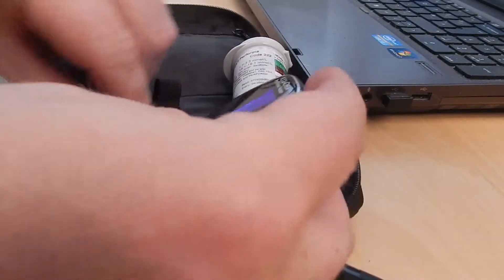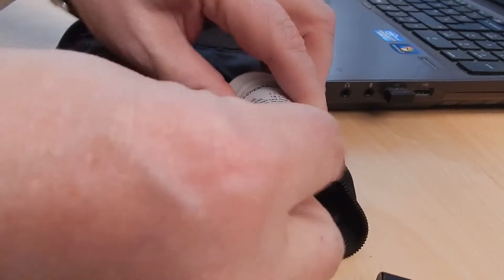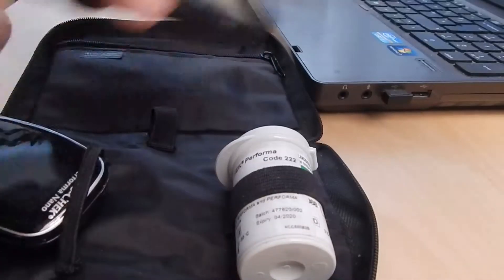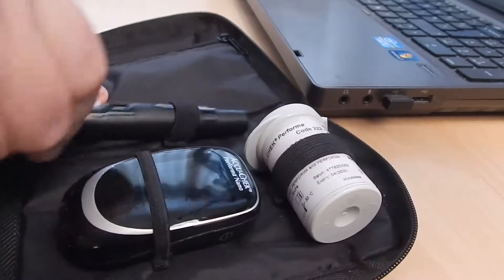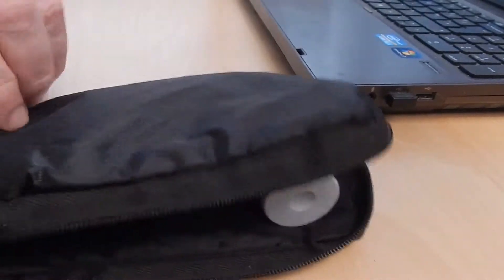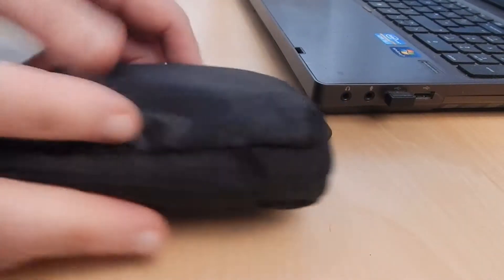Take out the strip — the reading's been saved into the device. It turns itself off automatically after a few seconds. Put the canister back in your pouch. I'm told it's very important not to leave the lid off the strips. So zip up the bag, and your task is complete.